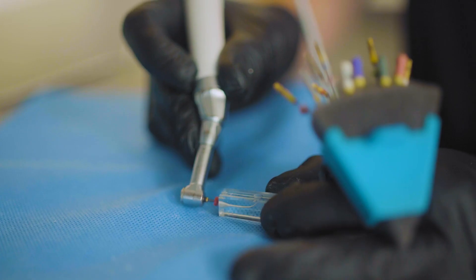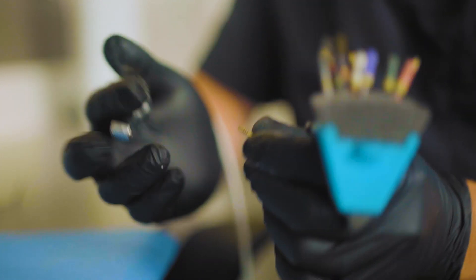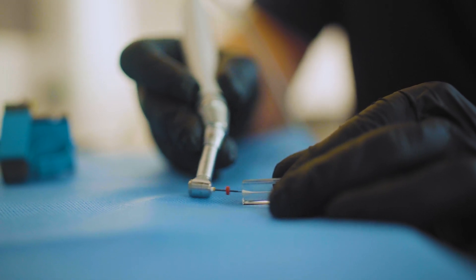Henry Schein has a lot of resources available online. There are a couple of different stepwise approaches. It's an easy system — it's not complex. There's no special handpiece; just grab the rotary handpiece you've got and set it to the right parameters. Practice a couple of times on some plastic blocks or extracted teeth, and you're up and running.